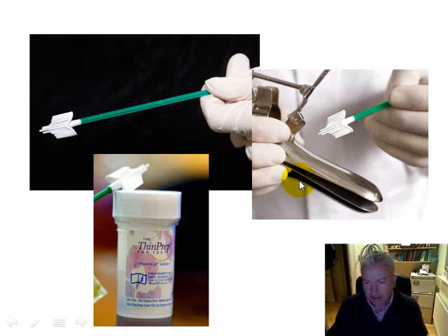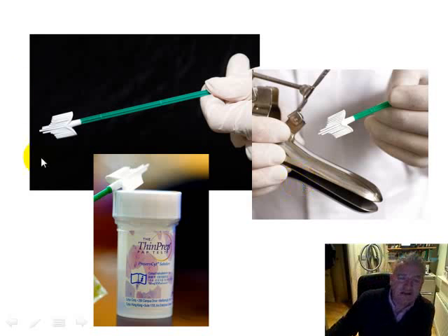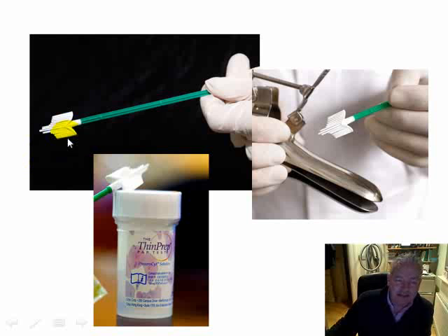Again, when dealing with the cervix, you could be asked to identify the methodology of taking smears. And nowadays they're taken with a brush system, and the brush is made of plastic, and part of it will sample the endocervix, and the rest will then sample the outer element of the cervix. So this is commonly used.